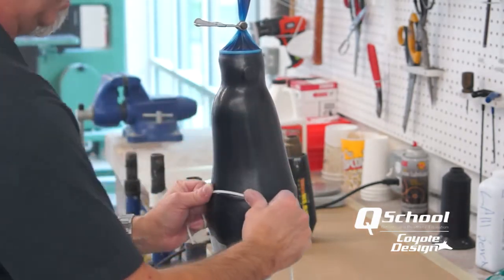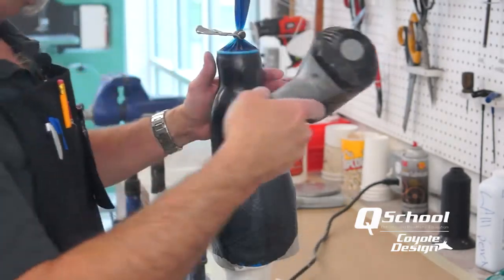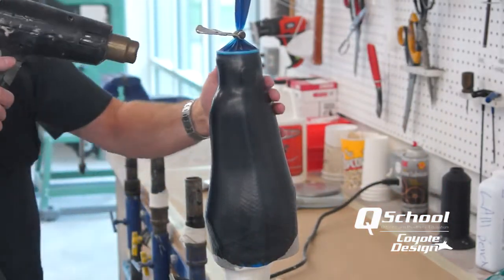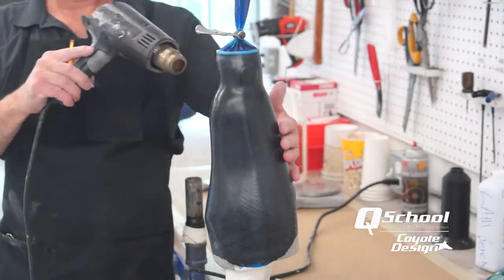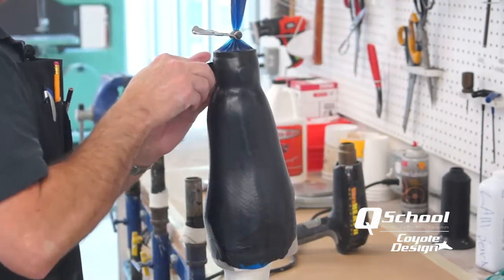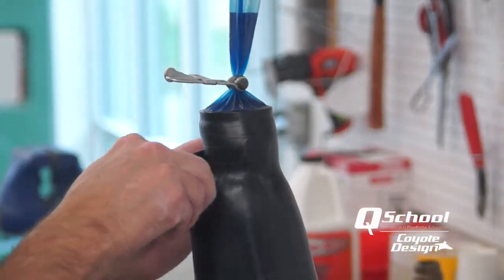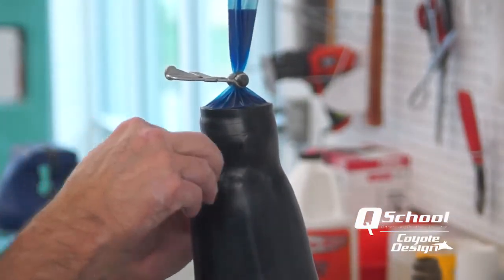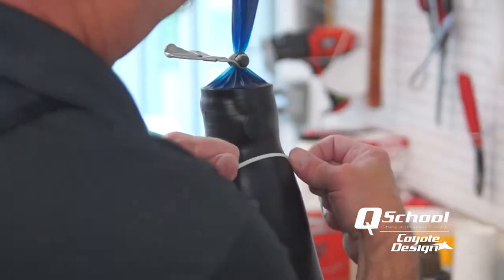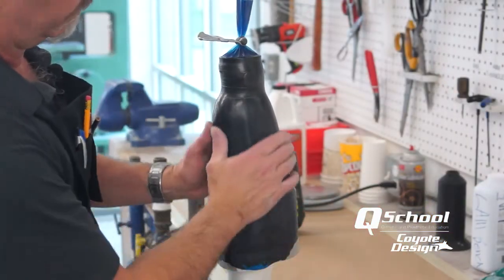Right before it sets up, that's the last thing I do — run it out over the edge. Even with this modified acrylic I'm going to warm this up a little bit, string it one more time to get that excess out of the end. Sometimes when you run some tape around there it helps push out excess resin. We're done playing with it — we'll just leave that alone and come back to it in half an hour and cut her out.